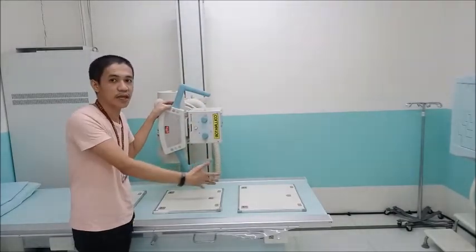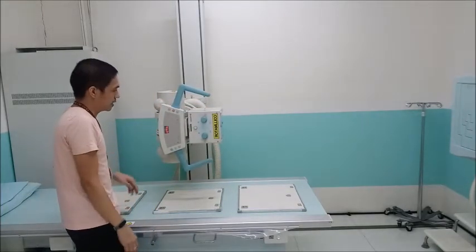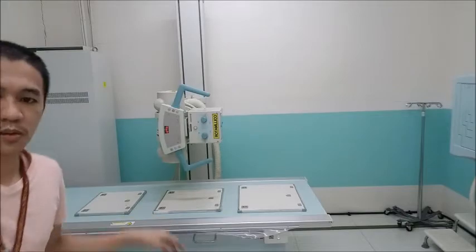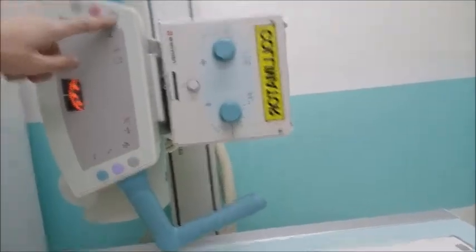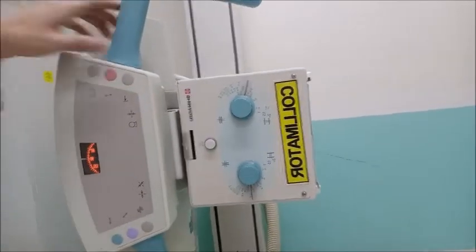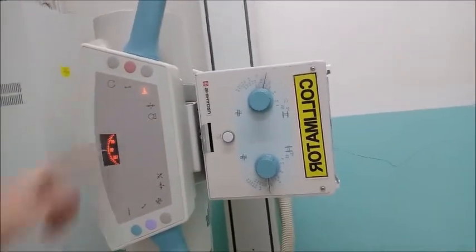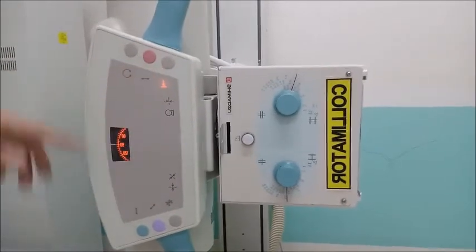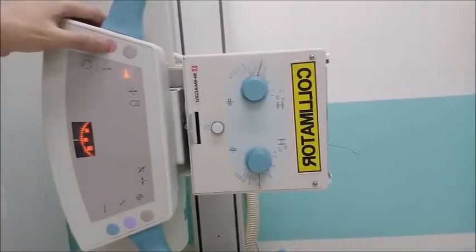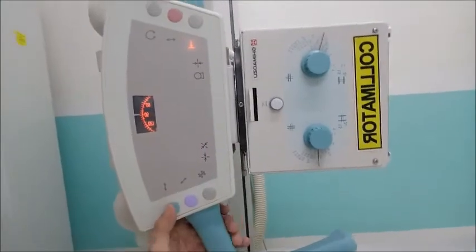Okay, like for example, a chest PA examination, so you have to direct the tube towards the chest stand. Again, like in the previous video, you have the locking mechanisms. Can you see? You have to ask your radtech later in your clinical practice what the purpose of all these buttons is. For this type of machine, this is for the locking mechanism, and this one is for the forward and backward movement towards the chest stand.